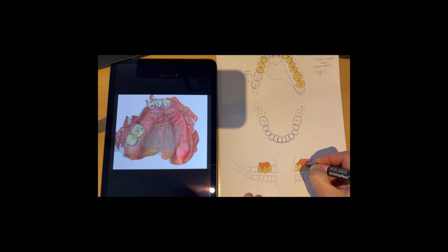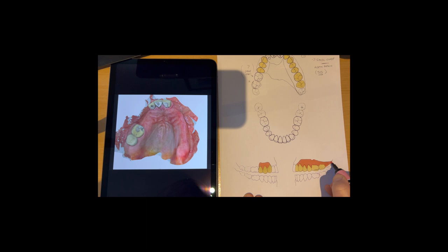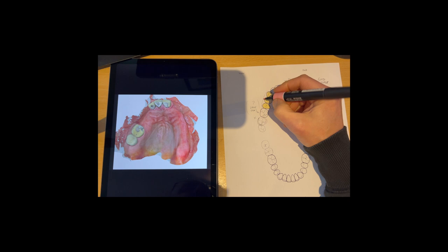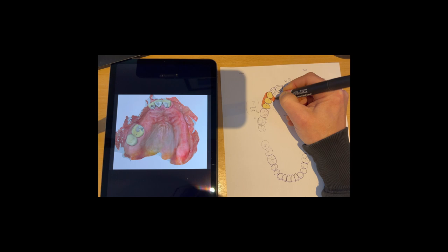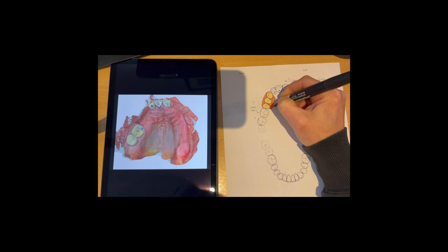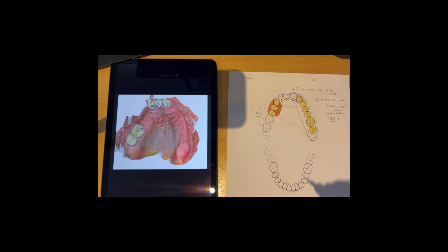So I've done all I've received is just this here. Once I - this is my prelim design. Once I've got the models, the casts, primary casts, this can be verified and any changes can then be made to that design as need be. So this whole denture would have a new occlusion completely on it. So it would be opening the patient's bite up onto this. So these new rests on here would be part of that occlusion. Everything would be touching. So we can actually enlarge those rests if need be to uncover a little bit more of the occlusal surface.